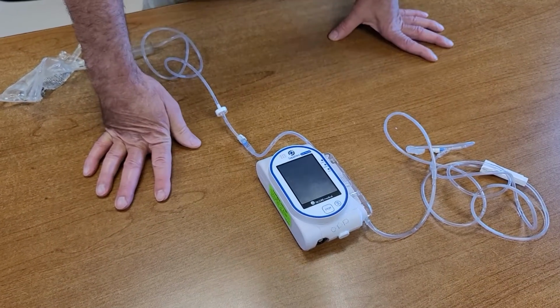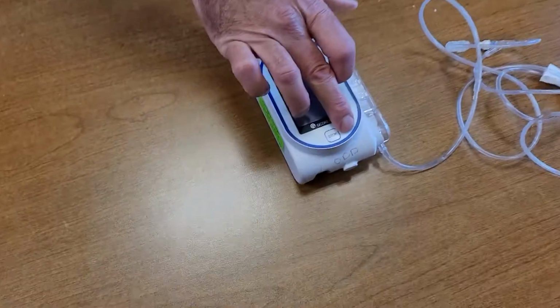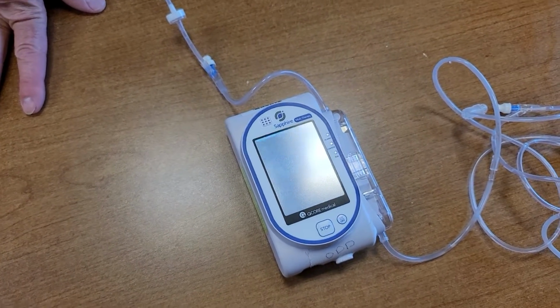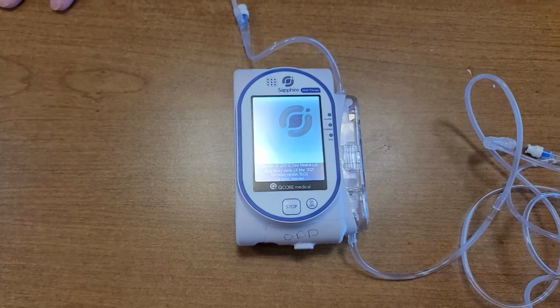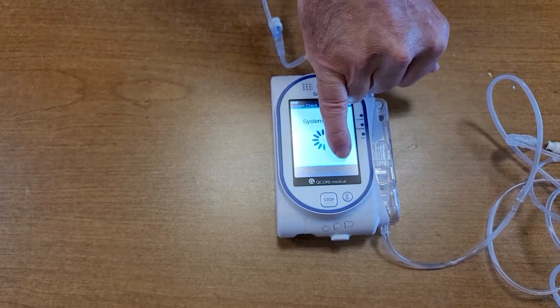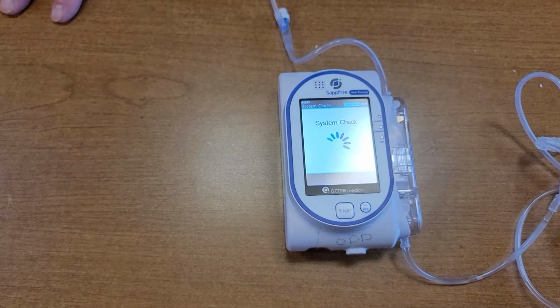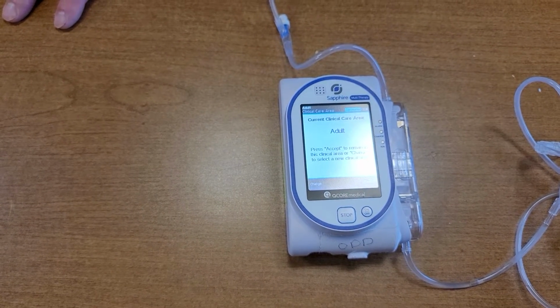Front of the pump, there's not even very many buttons on it. So we're gonna hit the on switch. When the pump comes on, you look at it, says Life Flight March 2021. That should have come up in the video to start with. We'll be able to see it later. If it doesn't, we can show it again.